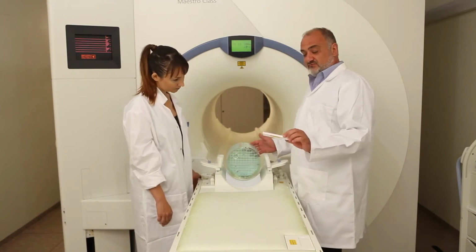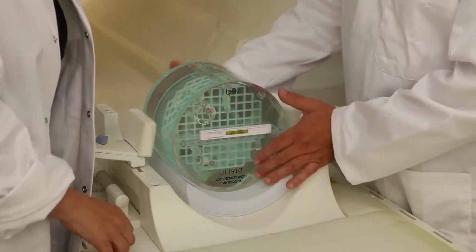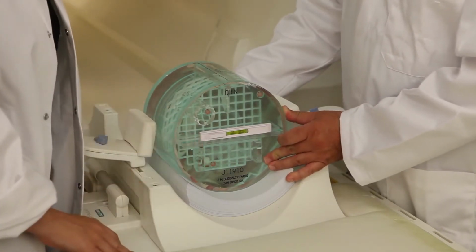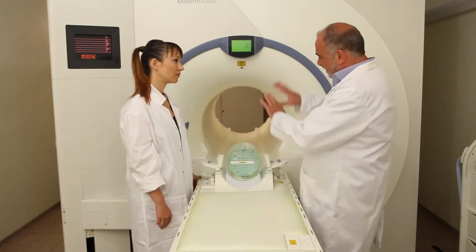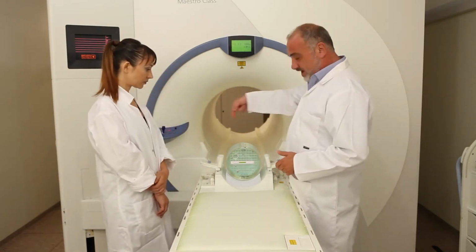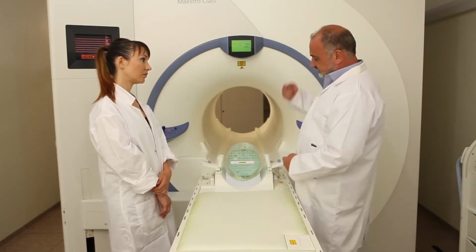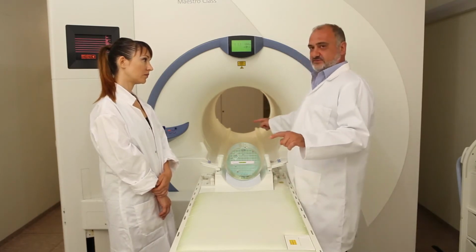Another important issue is the level. We have to use the level in order to be able to align with the axis of the magnet. Having said that, first of all, I have to define the axes. You can imagine that the magnet is a barrel. So we define this axis, the left-right axis, as the x-axis. The anterior-posterior axis is the y-axis, and this axis is the z-axis of the magnet.